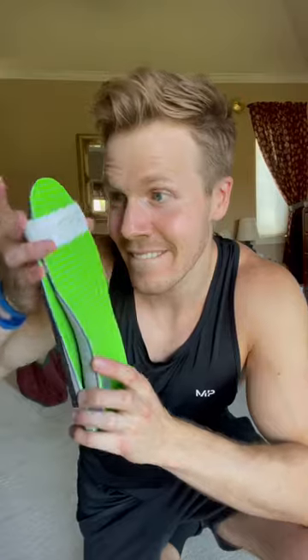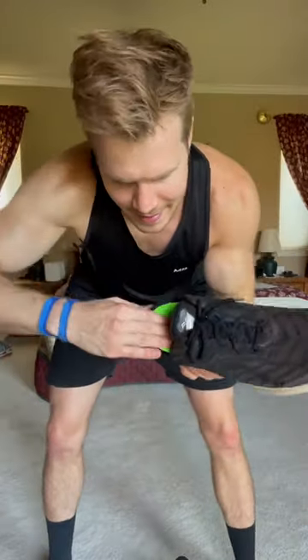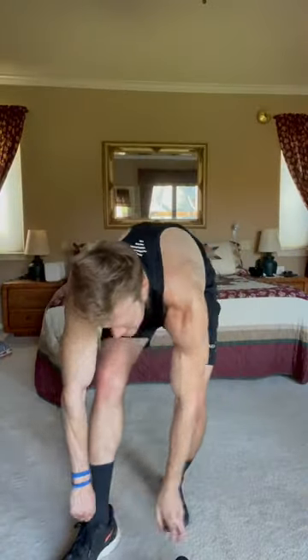When I opened them, it was just super exciting to finally see what was made of them, and oh my gosh, they were literally perfectly shaped to my feet. They were also perfectly shaped to my specific conditions with toe pain and plantar fasciitis, and they fit like a glove.